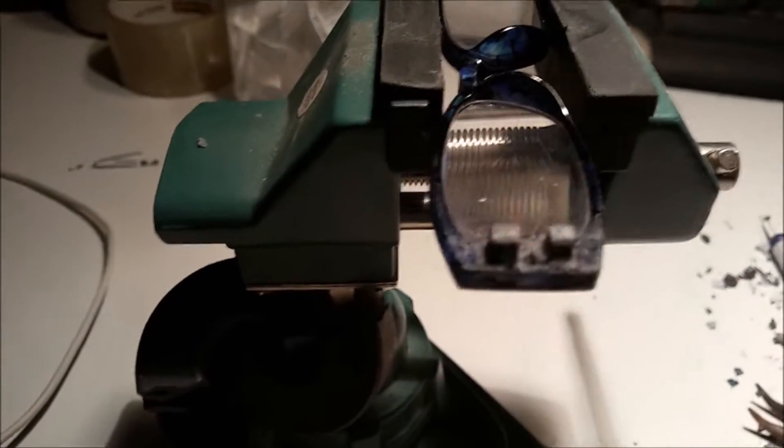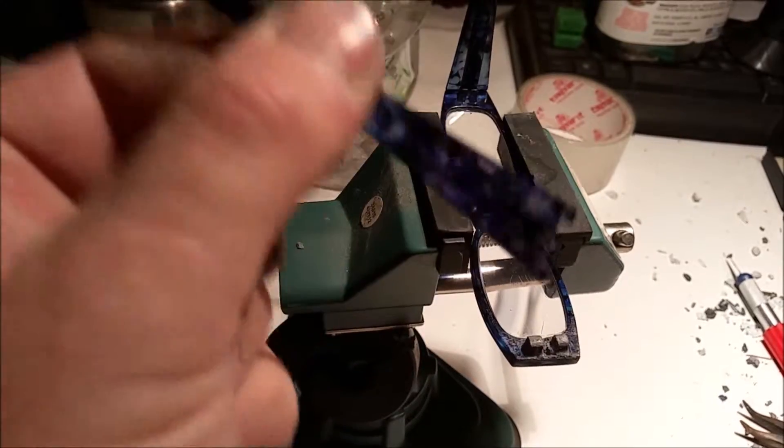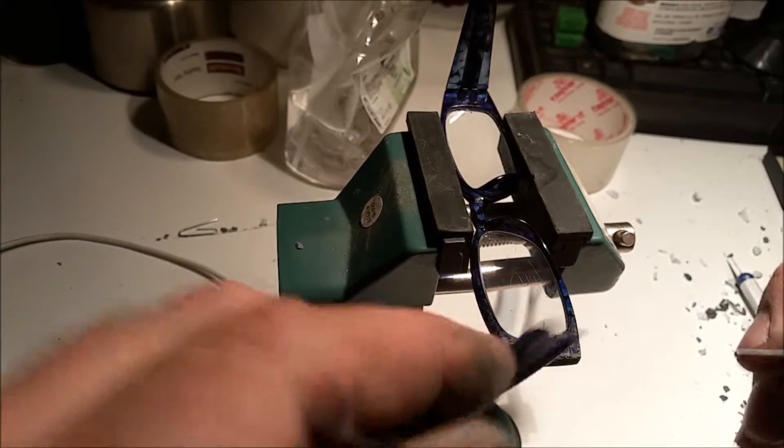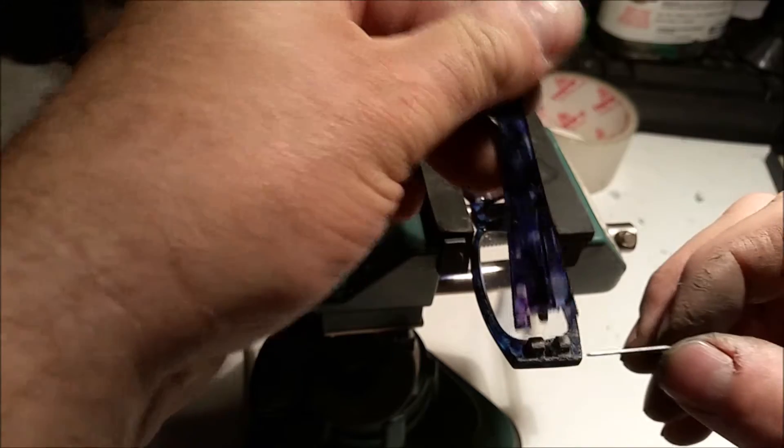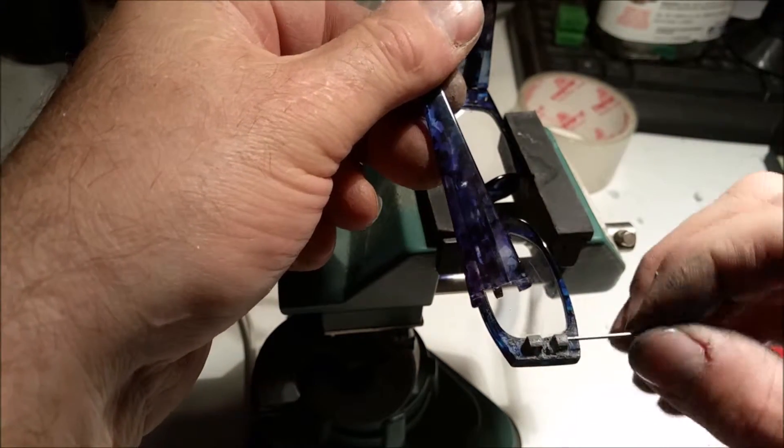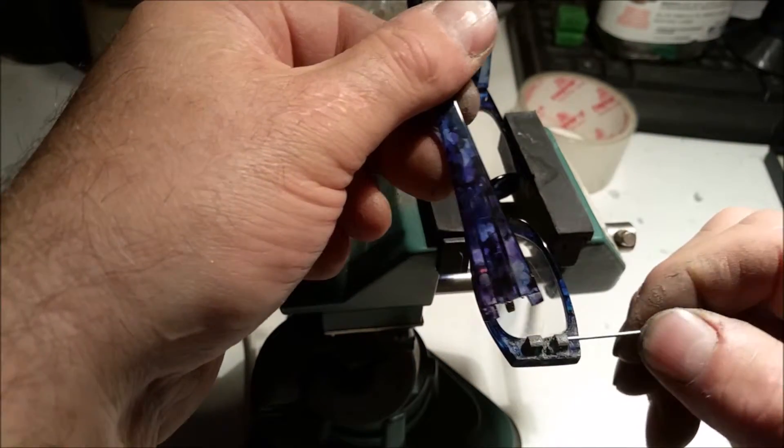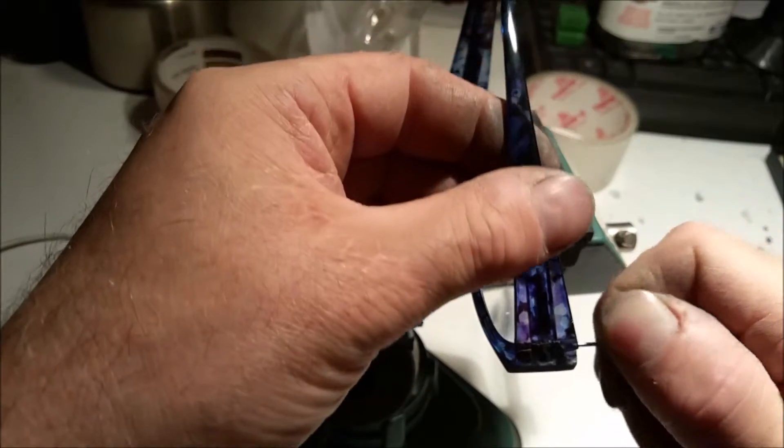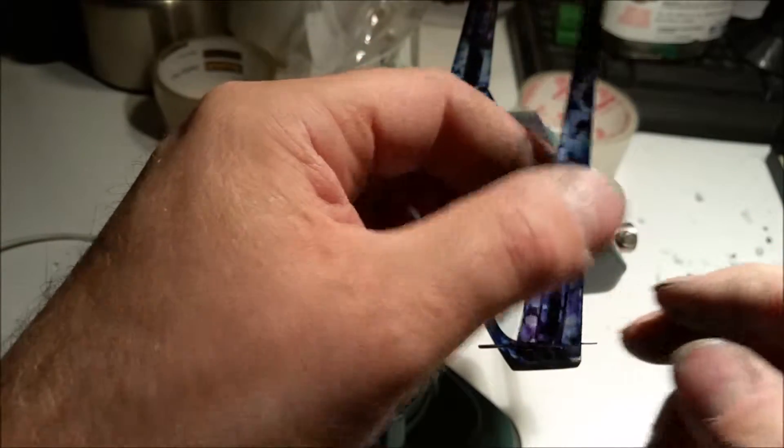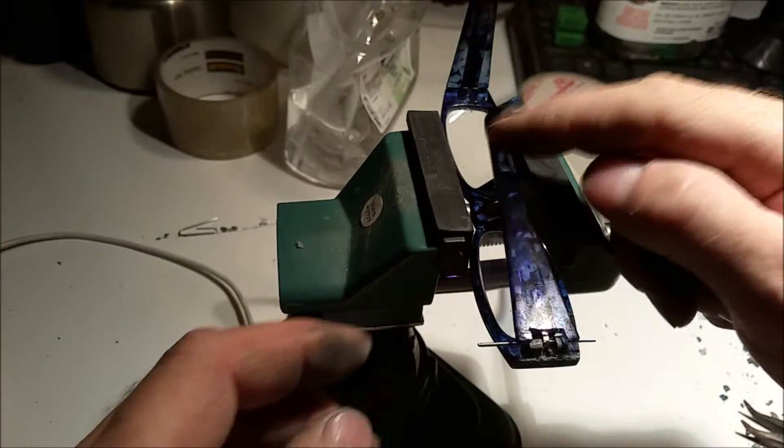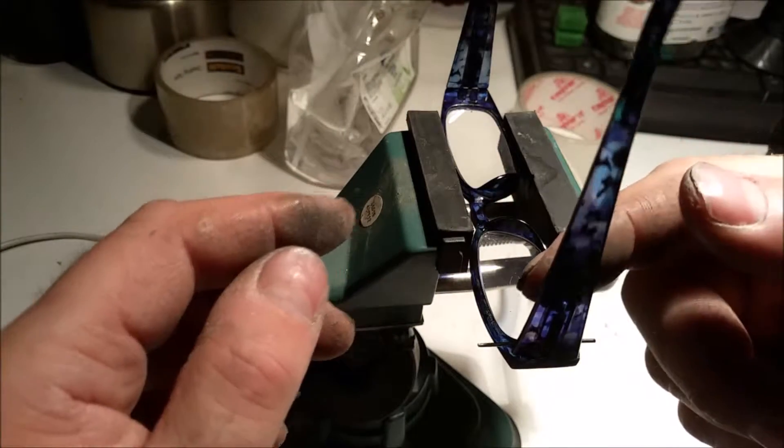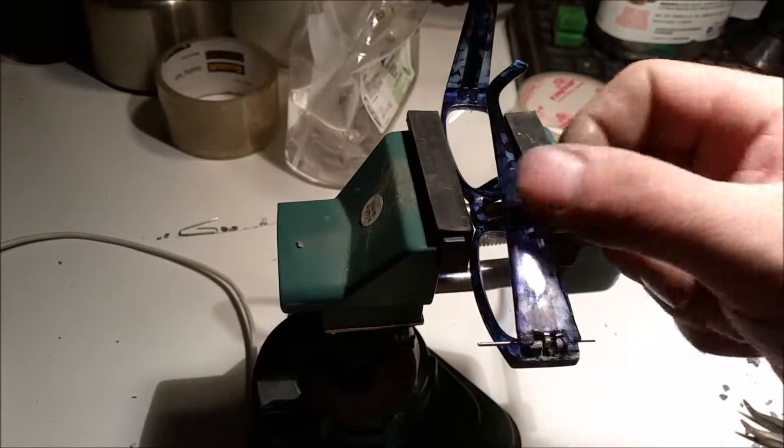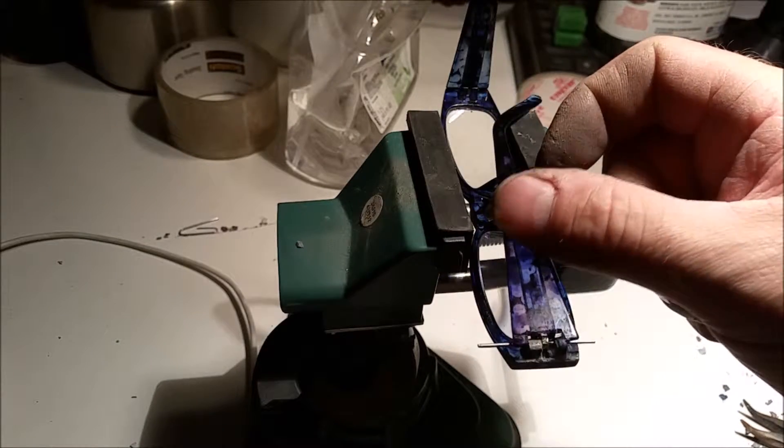Just get the thing. This is the thing that goes in right here. Push this through. It's a piece of a paper clip. Push it through. And there you go. It doesn't stay open, but you can wear it if it's your favorite glass or whatever.